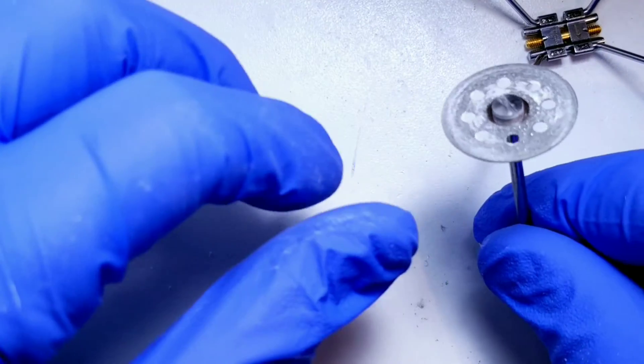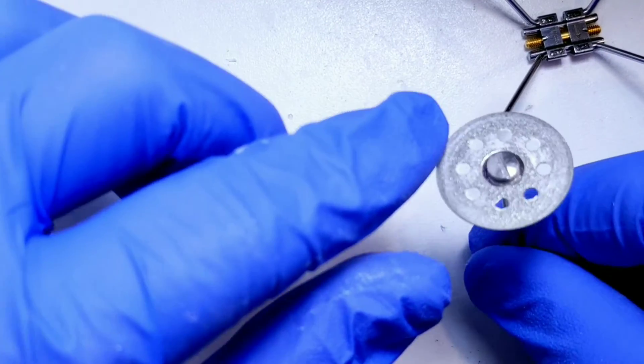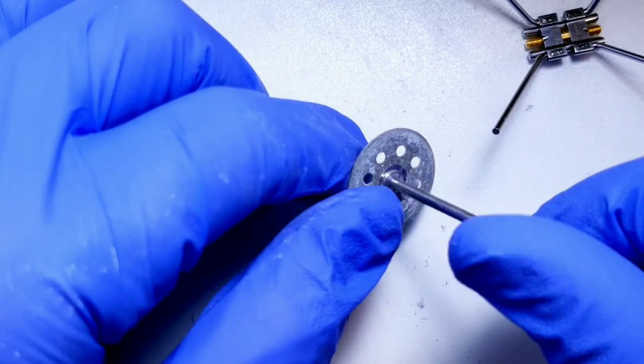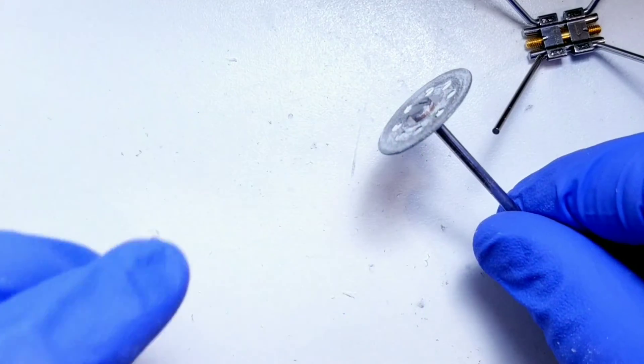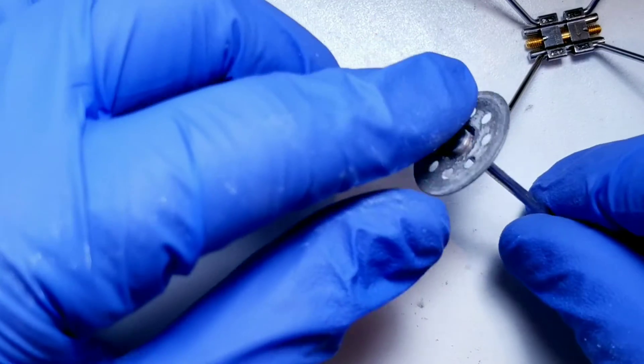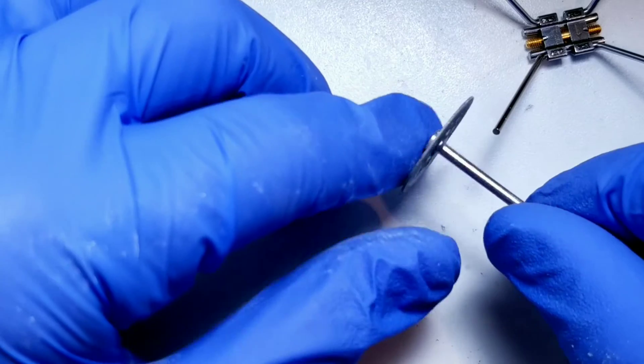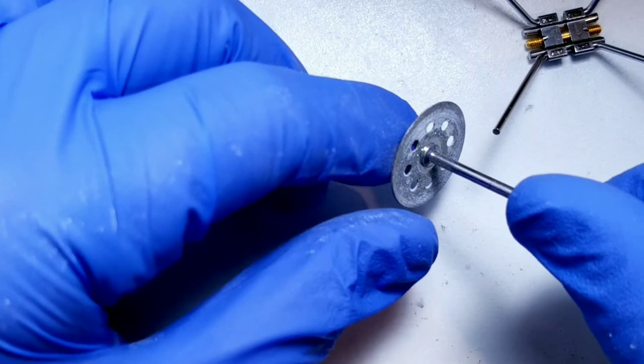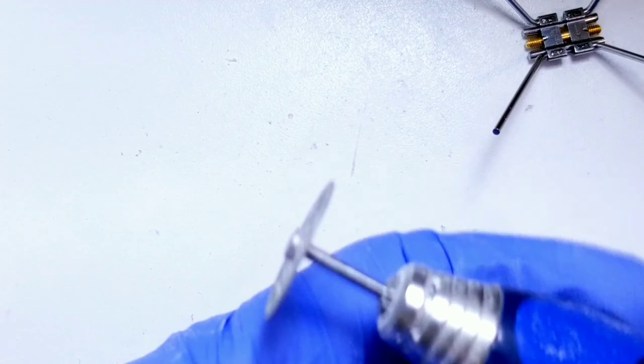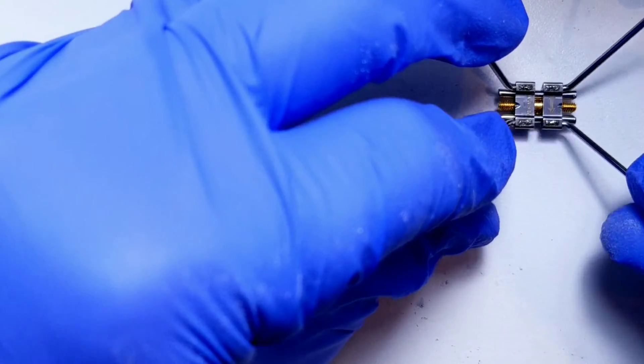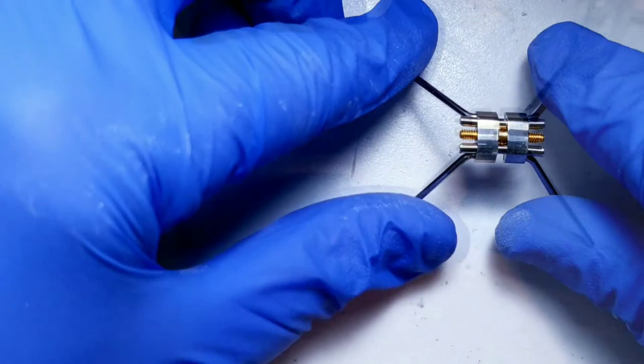To begin with, I buy my diamond wheels at Home Depot. They're actually pretty cheap, and you can buy them at the Dremel section where they typically store all the tools. These burrs are about a little under twenty dollars, and they last a good long time and are good for cutting appliances like this where you don't want to use your good diamond burrs.